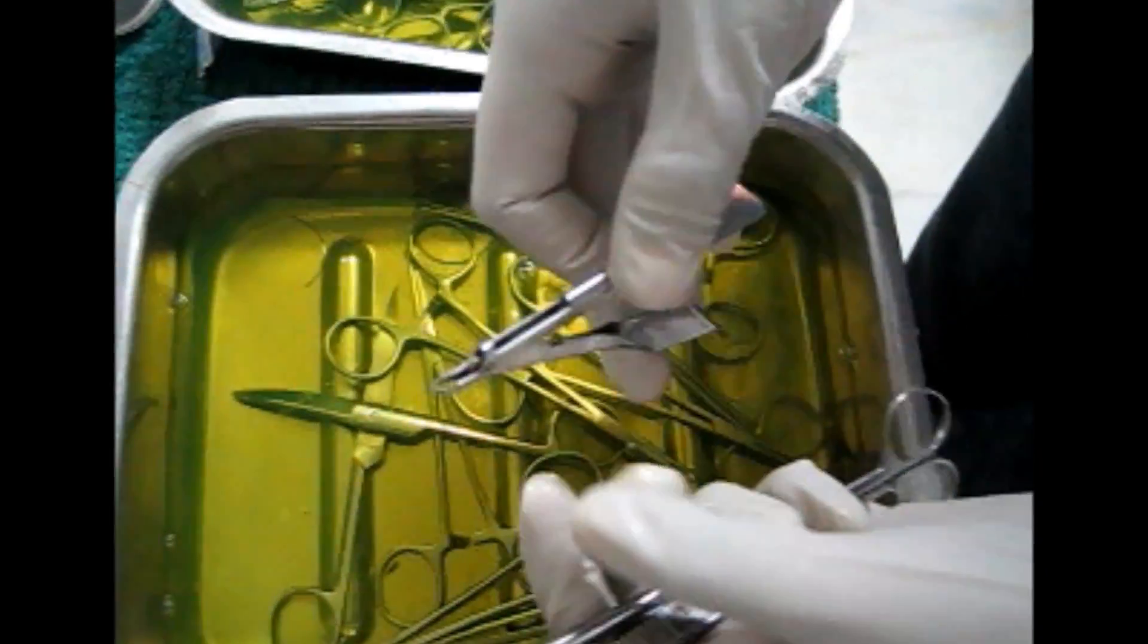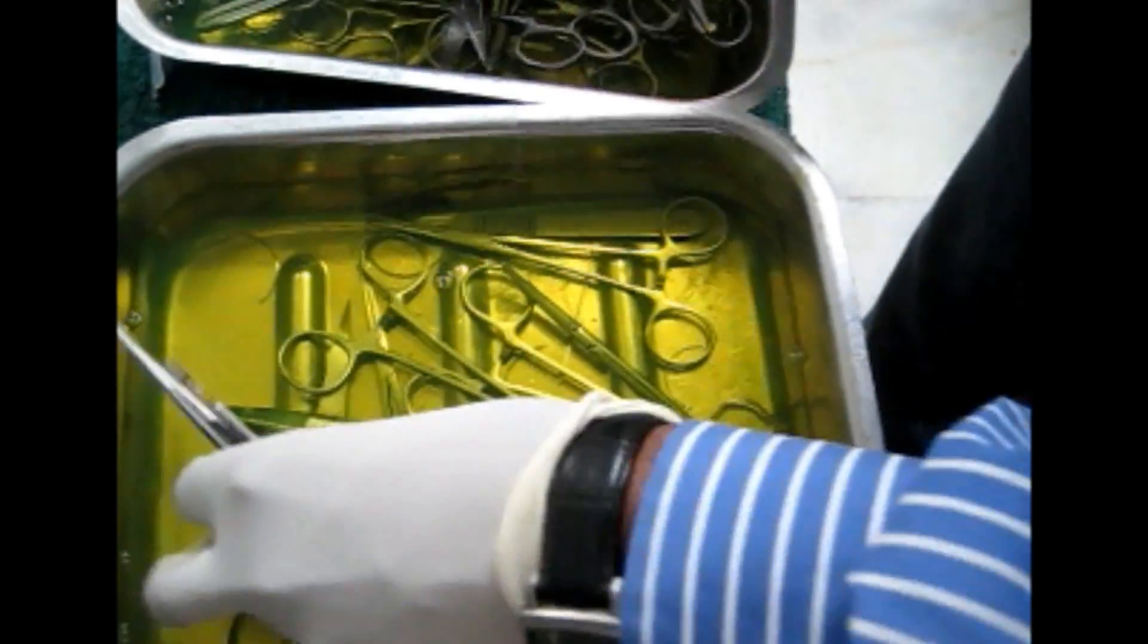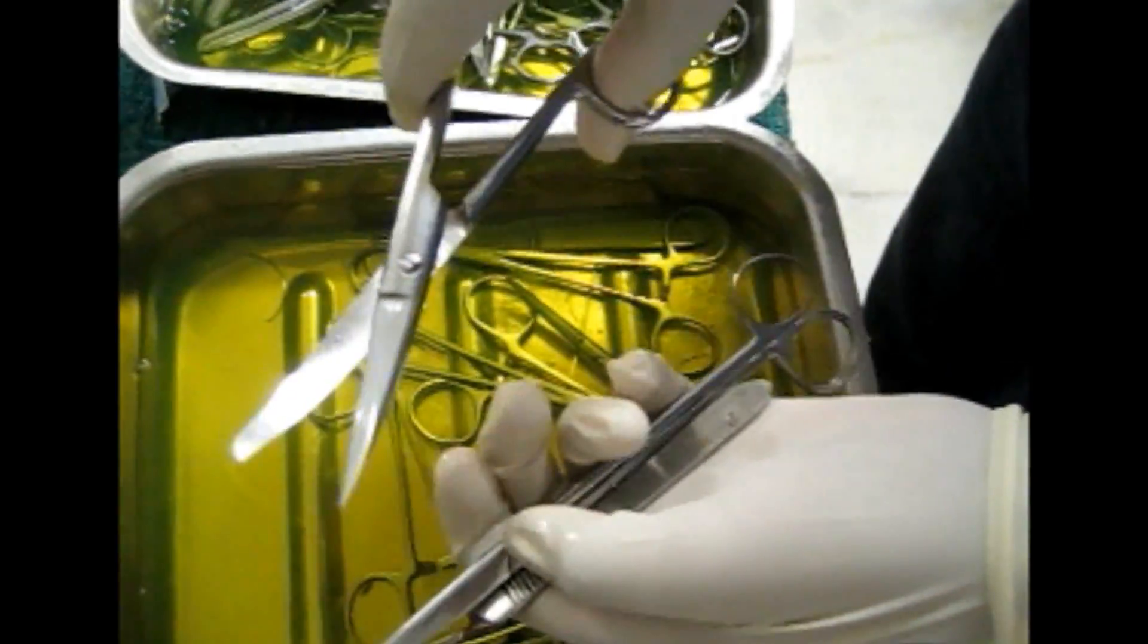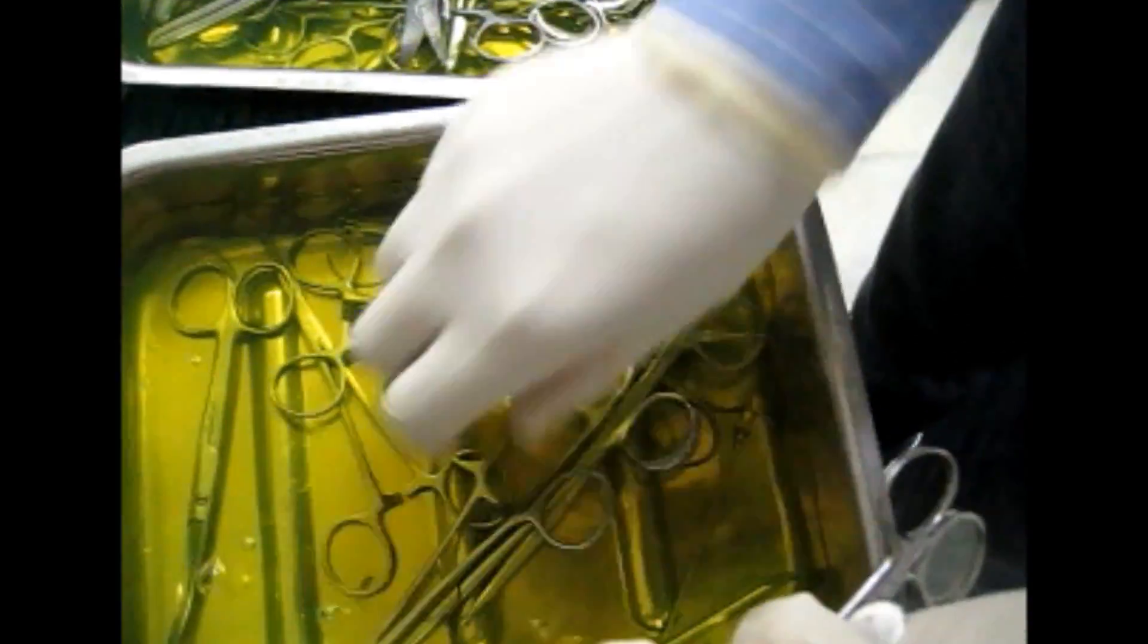Now, this is an instrument which is used to remove the staples. Stapler removal. This is the curved scissors.